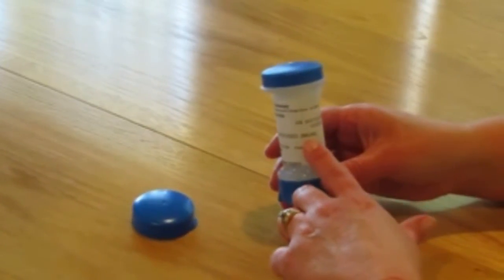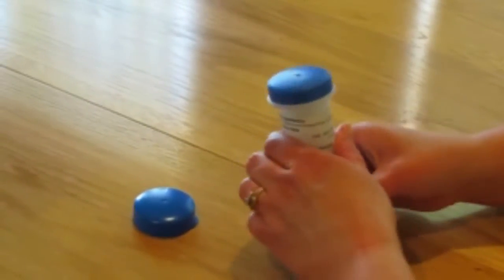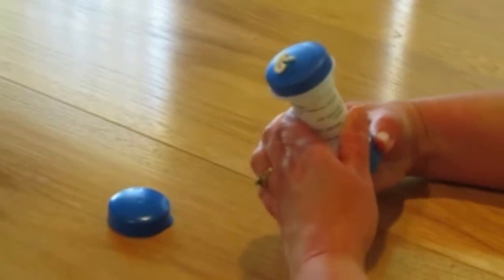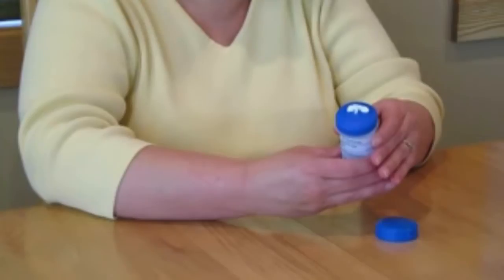If your directions indicate you should use more than one click, pause for a short moment before clicking the device again. We need to allow each click to fully dispense.